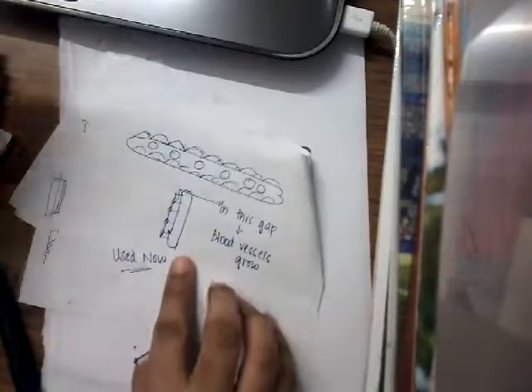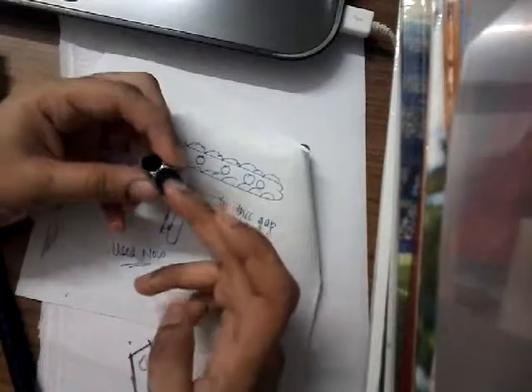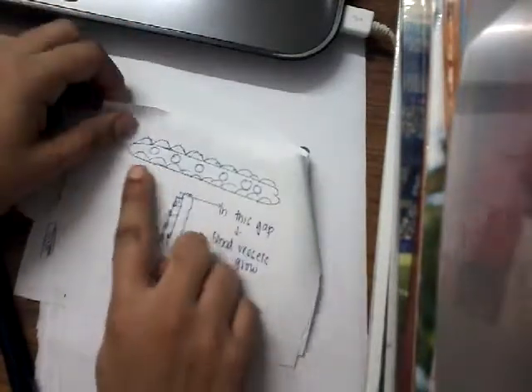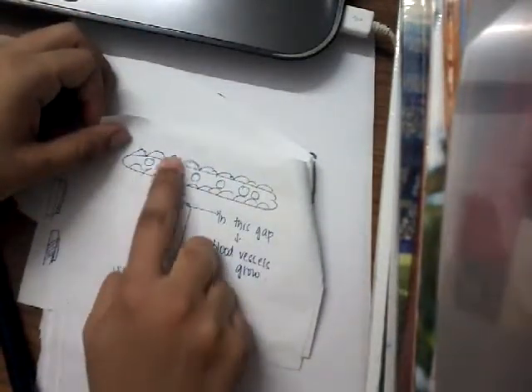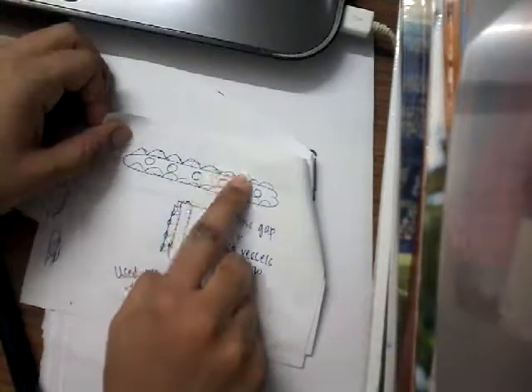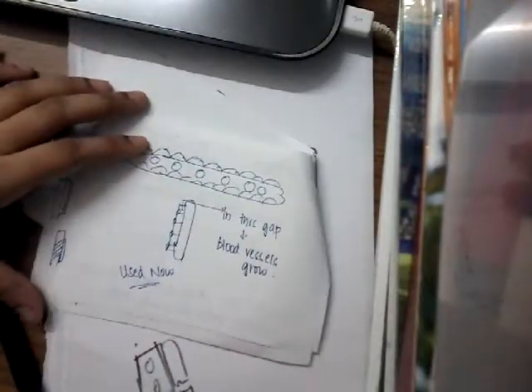Here the grooves are designed in such a way that only the concave surface of the plate touches the bone. As I have said, only this part touches the bone, and in this groove, the bone grows. This is the plate and these are the concave grooves. In between the grooves and in between this gap, you will see that the blood vessels grow.